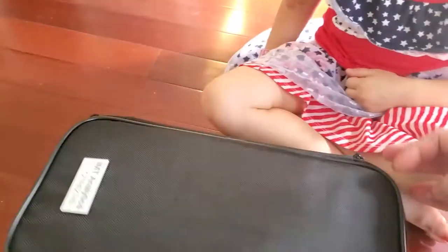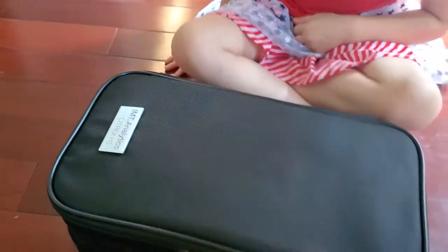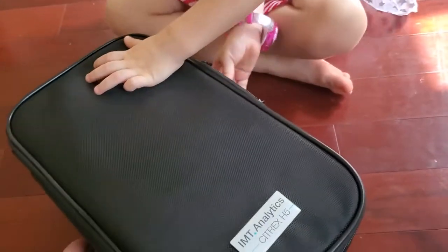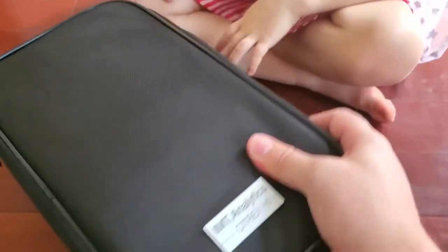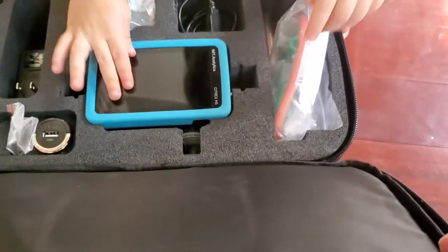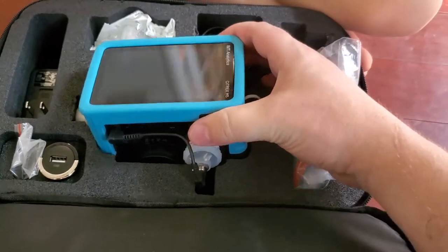So that's the test lung, which is cool because we're going to need that to test a ventilator. Let's see here — what about this side? Can you help me with the zippers down here? Okay, you ready? I've been waiting a while for this. Look how small it is — and it's blue! I guess I lied to you when I said it was black.